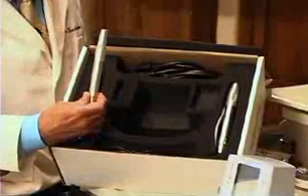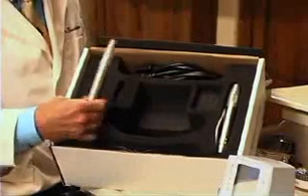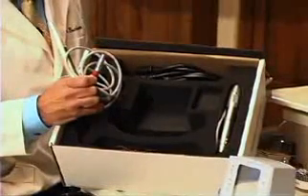This is the new System B handpiece. It's really nice. It's got a silicone cover and an easily pushed button with a light on it — I'll show you that later. The cord has a medical-grade plug that can stand up to any kind of abuse in the clinical environment.